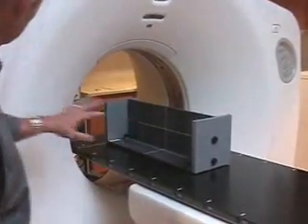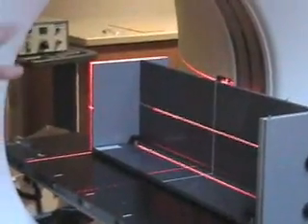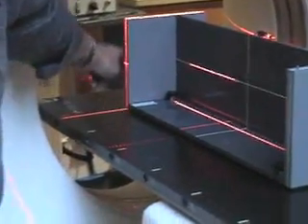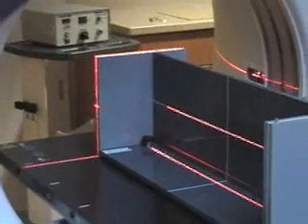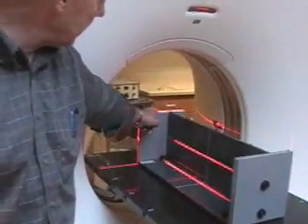On a GE machine, the little light bulb here will turn on the internal lasers. We push that and you can see all the lasers came on — these are all internal to the machine. We're going to line this end cap up with these lasers. You have this cross laser right there, these vertical lasers, and this horizontal laser going across right here. We want those all to line up with the line on the end cap.